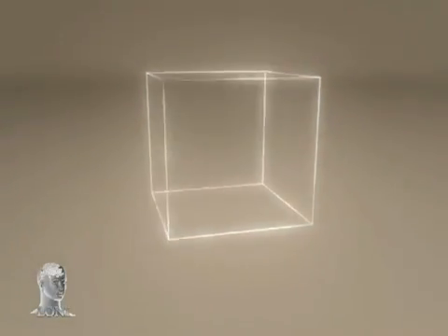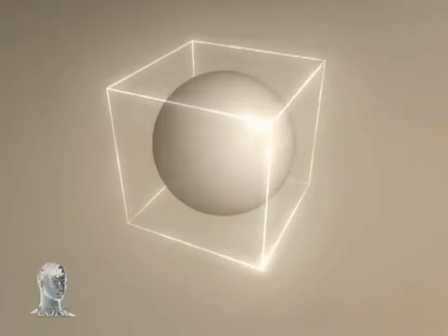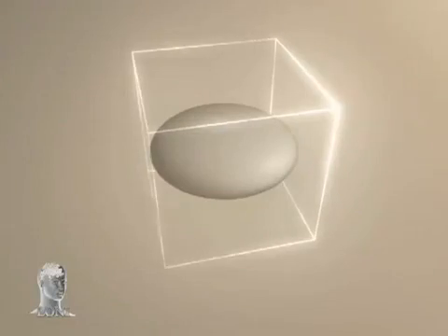Streamlined tracks are created voxel by voxel. In one voxel, a diffusion tensor can come in a variety of ellipsoid shapes.